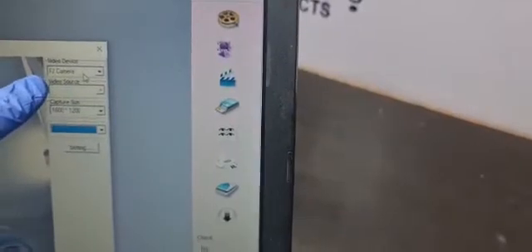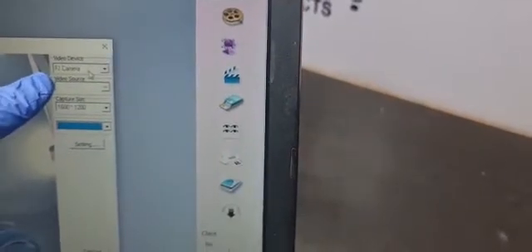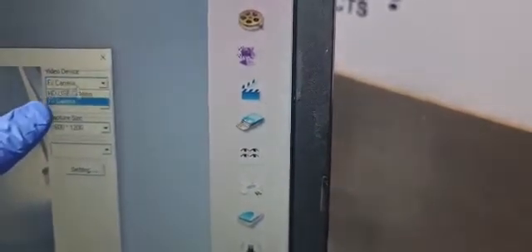Now you go to capture mode. Press capture. So you can see, this is the computer camera. So you can see the image. Now from here you select the USB camera, intra camera HD USB camera. So now your camera is working.